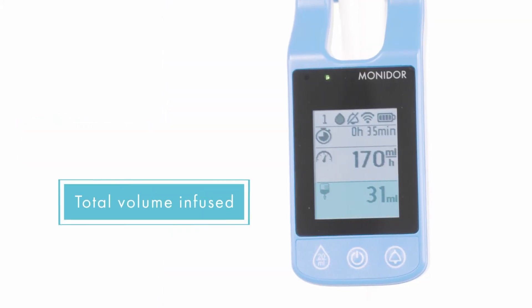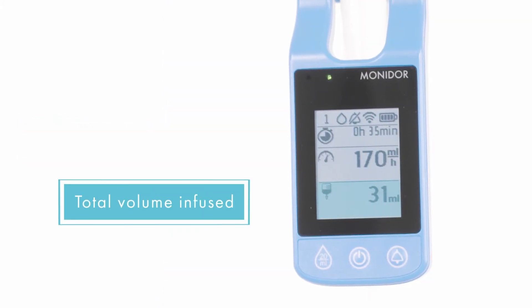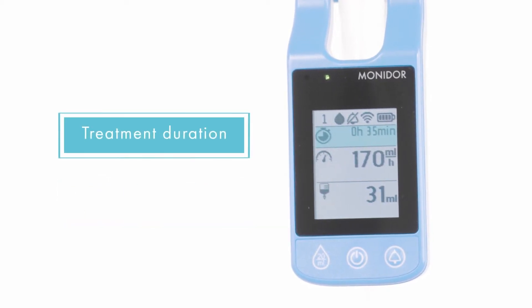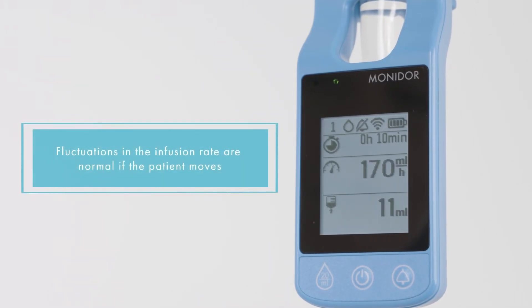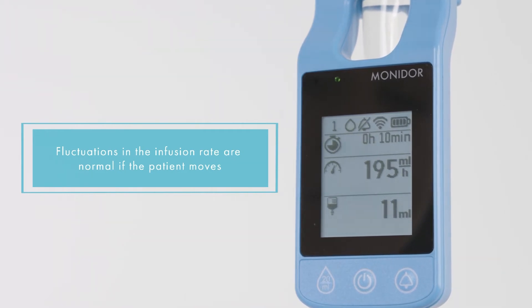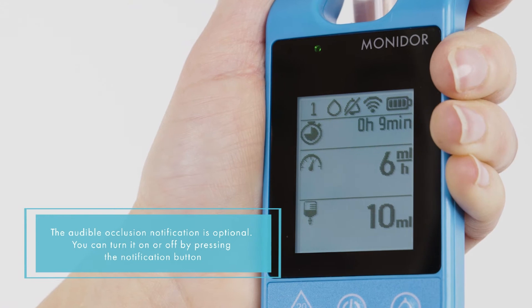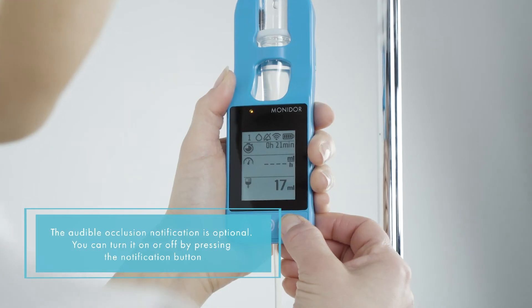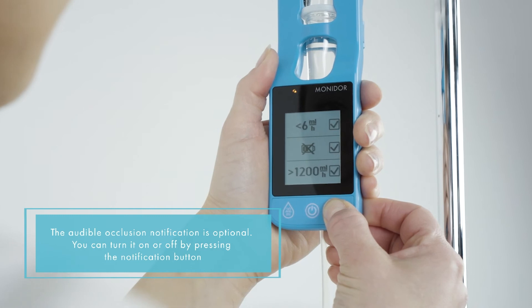The MoniDrop displays the total volume infused and the total treatment duration. Note that the MoniDrop device does not adjust the infusion rate itself — fluctuations in the infusion rate are normal if the patient moves. The audible occlusion notification can be turned on by pressing the notification button.